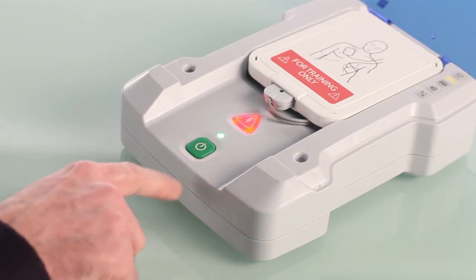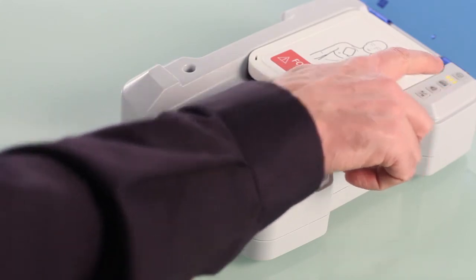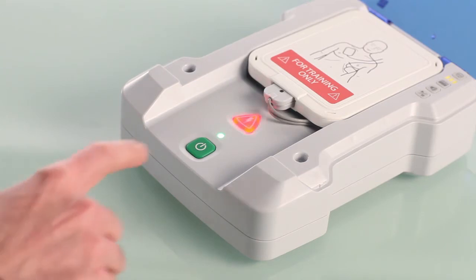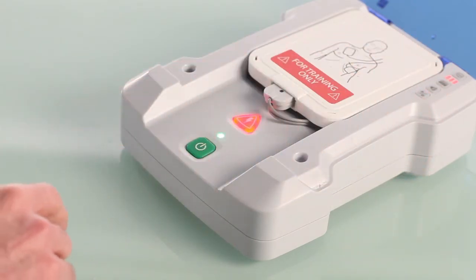The shock button will flash. Look at the selection indicator lights — if there are three yellow lights then the unit is in semi-automatic mode. If there are three red lights the unit is in automatic mode. To change the mode, push the shock button. To exit and save, press the on/off button.